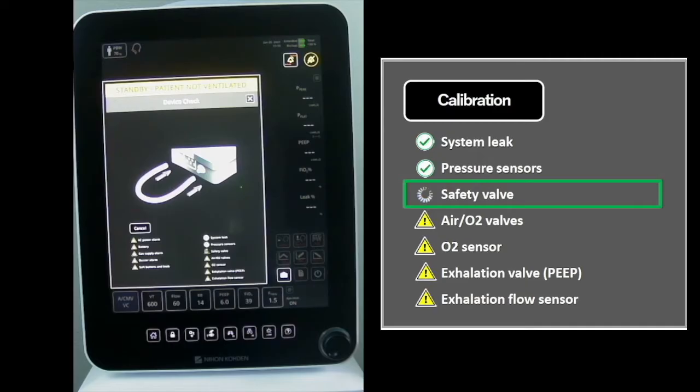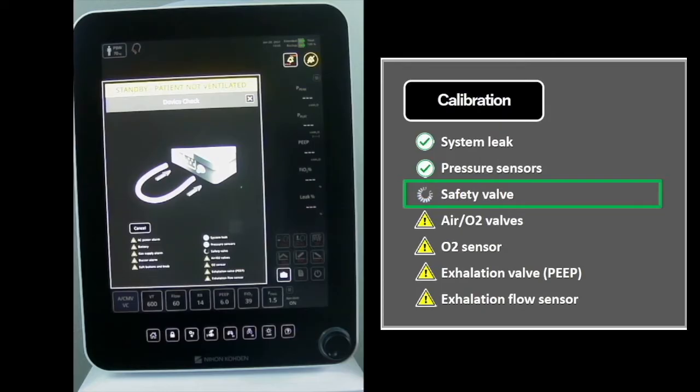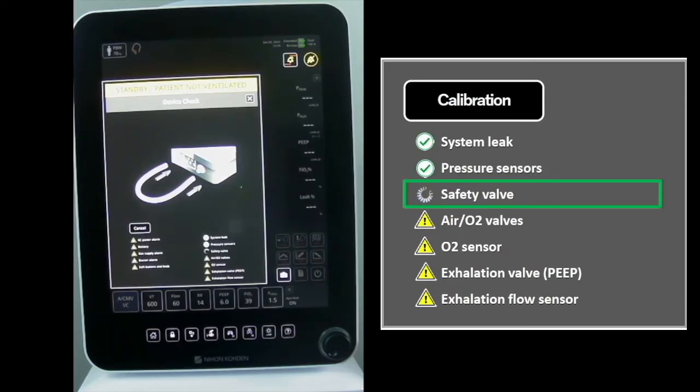The Safety Valve Test is comprised of two stages. During the first stage, the safety valve diaphragm is depressurized, causing the testing tube pressure to vent to ambient via the safety valve exhaust.